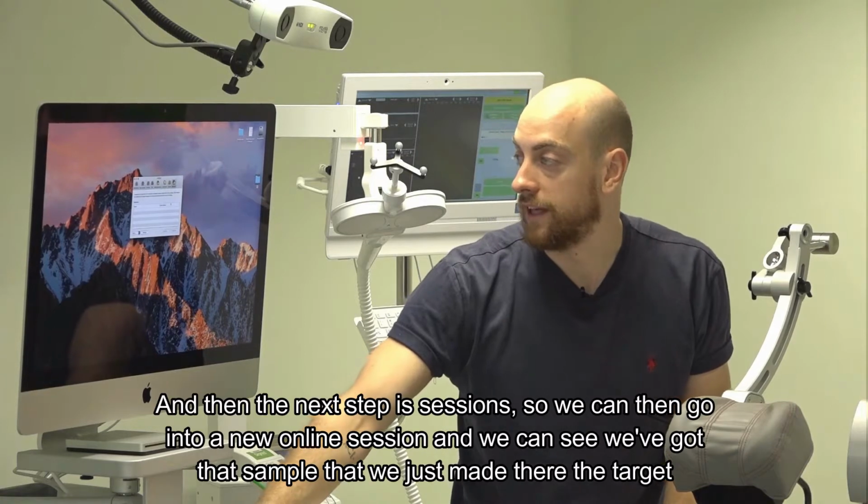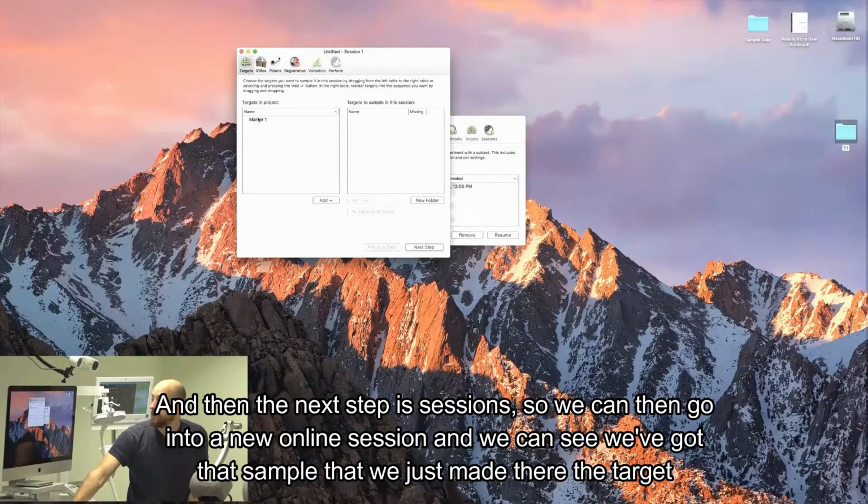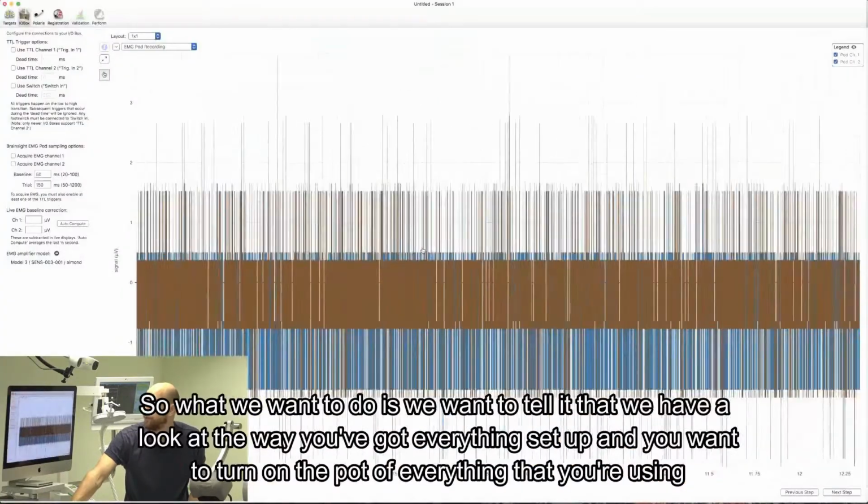And then the next step is sessions. So we can go into a new online session, and we can see we've got the sample that we just made there, the target. We bring that across, and we go into add, because that's what we want to find in this session there. And then we go into the next step.